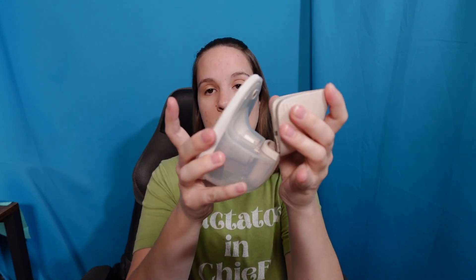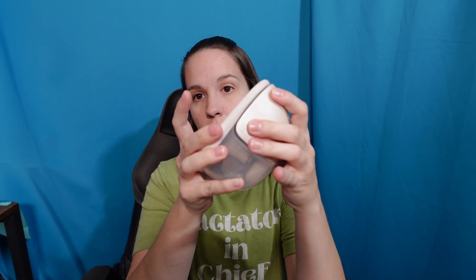Lastly, take the motor and align it with the diaphragm. Clicking it into place is the easiest way to make sure it's completely and properly on. If it's not fully sealed, you'll again have a loss of suction. You should hear it clip as you get past the protection zone. Once it's clipped in and you see there are no gaps, you'll know the pump is set up correctly and you can get going.